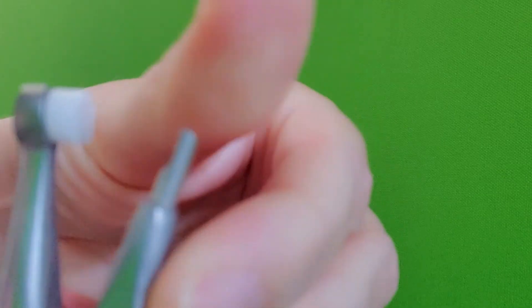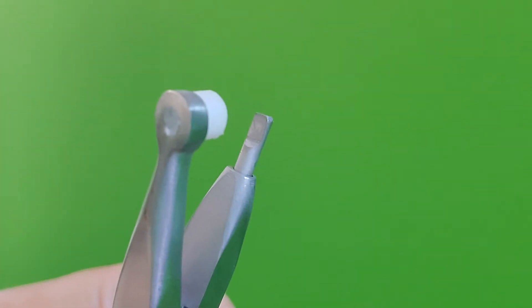Now, that's different from a band remover. A band remover is like a curve, okay? This is an adhesive remover, so it's actually very sharp. So it's really easy.